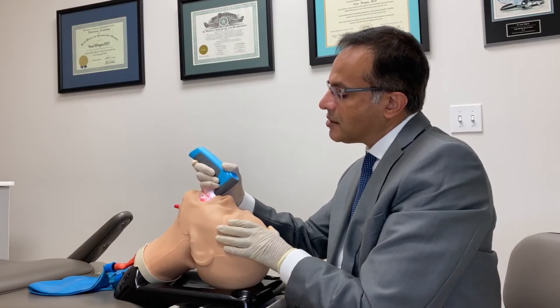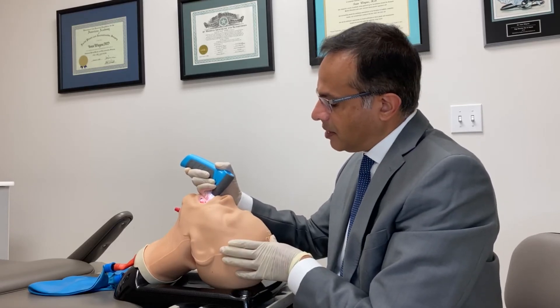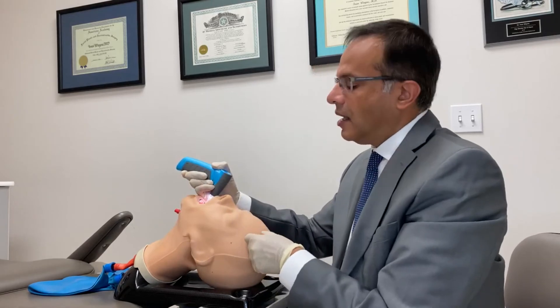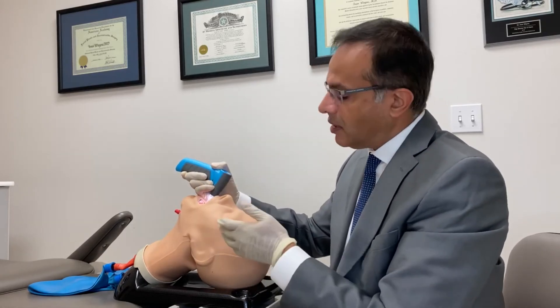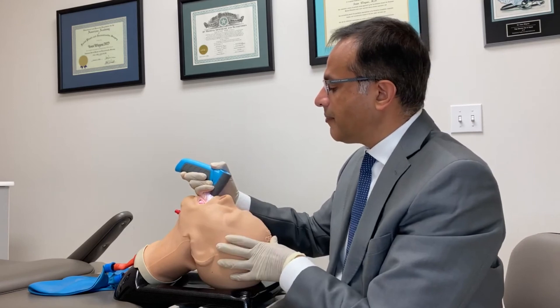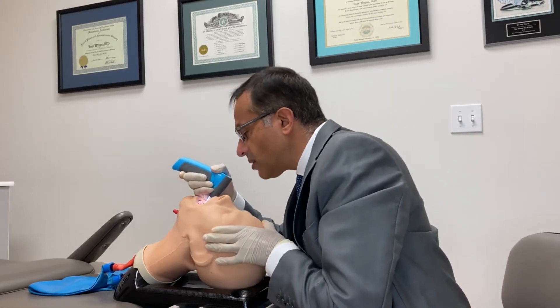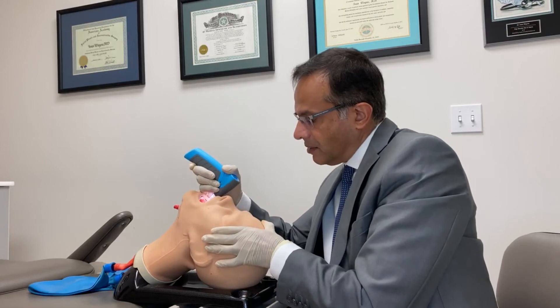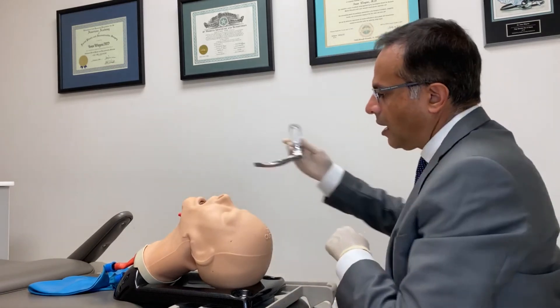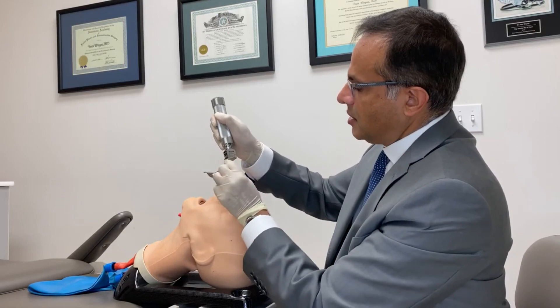This is intentional pressure and you don't have to use very much force against the teeth. It always looks worse on a mannequin because mannequins are so stiff compared to paralyzed patients, and these mannequins were designed for laryngoscopes that push away and up. That's why in our videos our mannequins usually have the tongue grossly inflated and a neck collar — we make it as difficult as possible. Intentional plastic and rubber against teeth versus a high-profile metal laryngoscope with a sharp angle — you'd think whoever designed it intentionally designed it to break teeth.